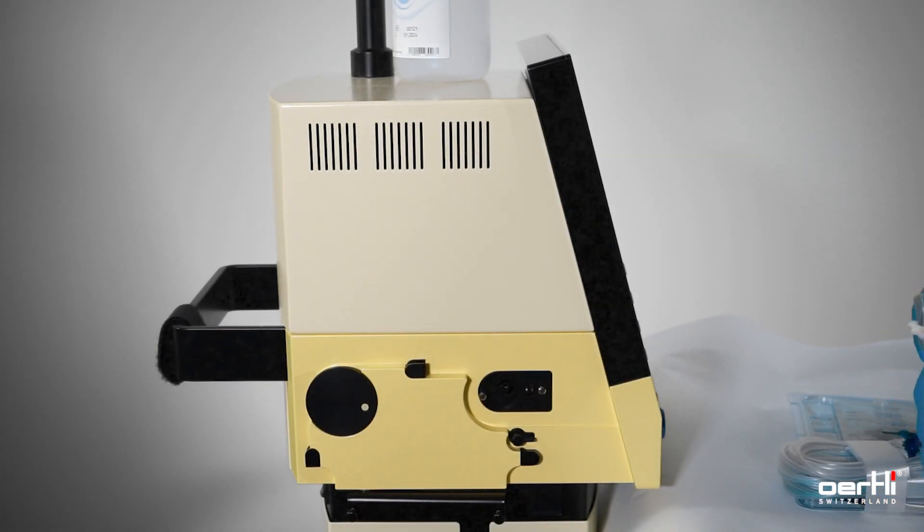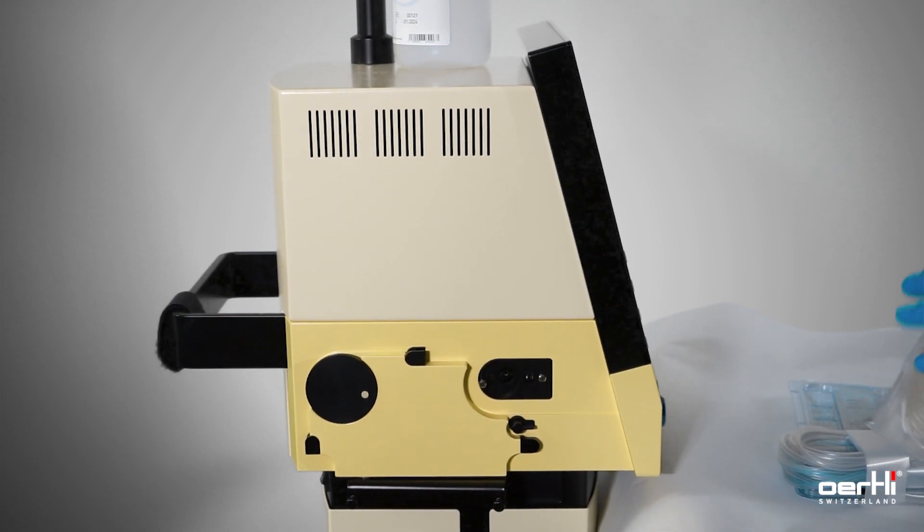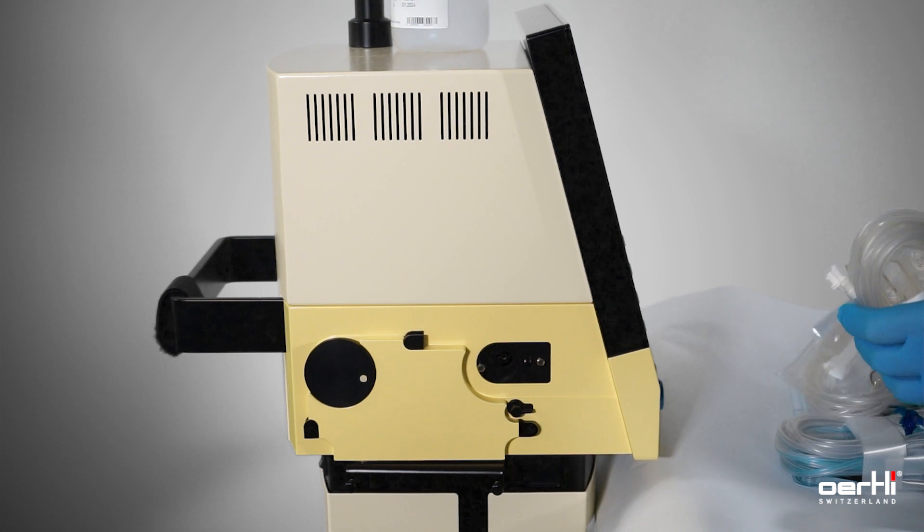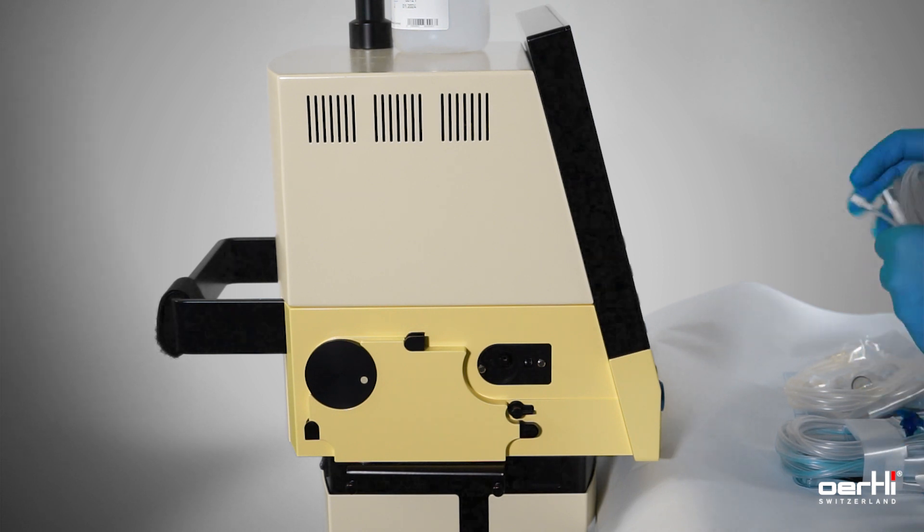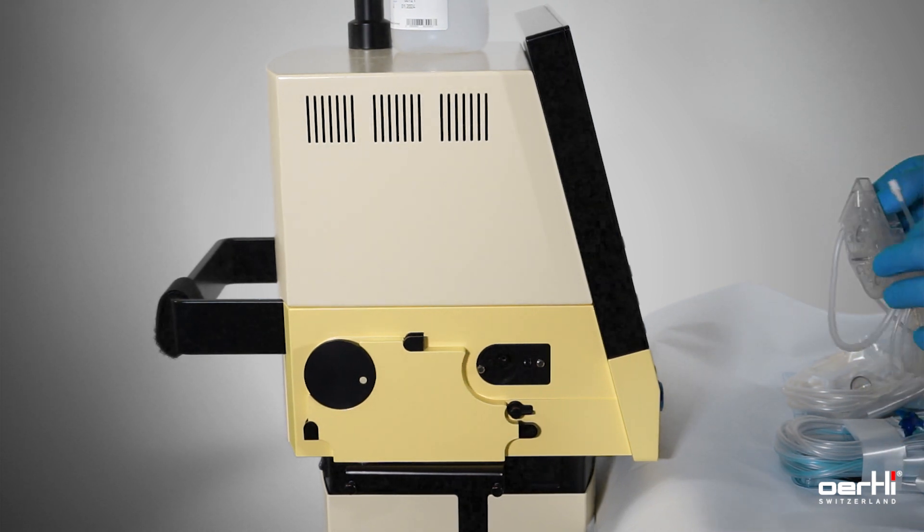Let's first install the cassette. You can do it either by yourself in sterile condition, or you can ask your jumper to support you. We show you how to do it in sterile conditions.